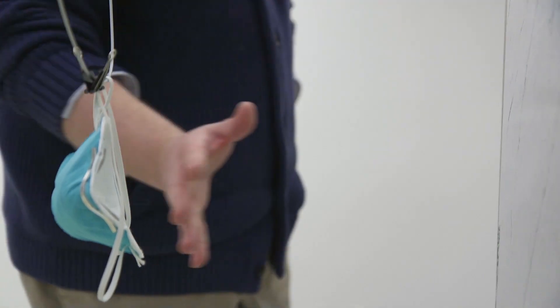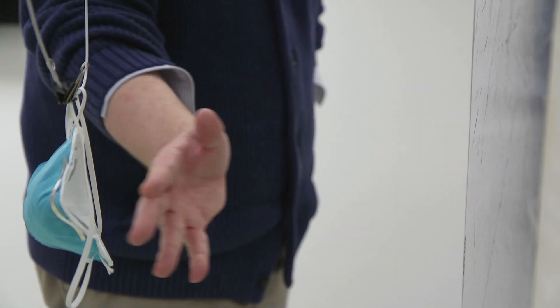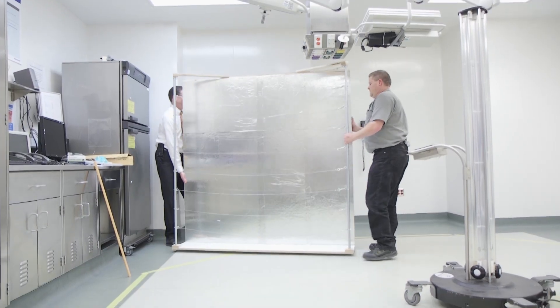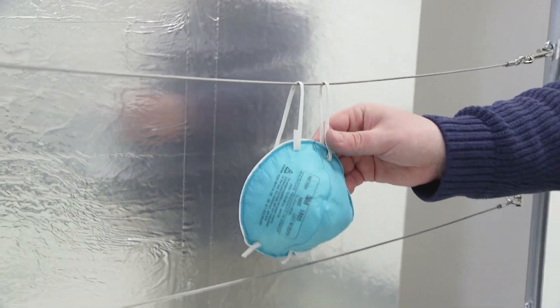The apparatus is going to emit a UVC light spectrum to N95 masks. There will be eight walls surrounding this unit with reflective foil on the back, with 10 rows that we can hang 13 masks on each row. We estimate we'll be able to do a thousand masks per session, and the session takes five to eight minutes.